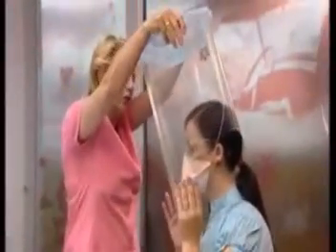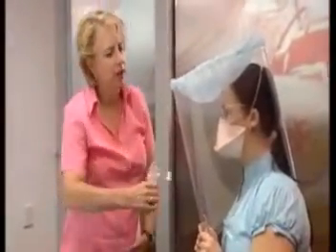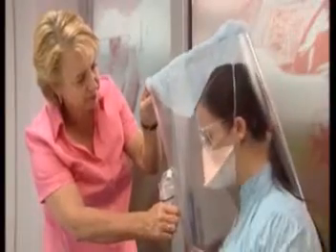On completion of this stage, the hood is removed and cleaned, and the person cleans their face and either rinses out their mouth or has a drink of water. The person now puts on the mask that has been selected for them, performs a fit-check, and the hood is placed over their head. A stronger concentration of solution is used to perform the fit-test. The tester atomizes the same number of sprays into the hood that was recorded as the threshold — for example, ten. The person then performs the standard set of activities.